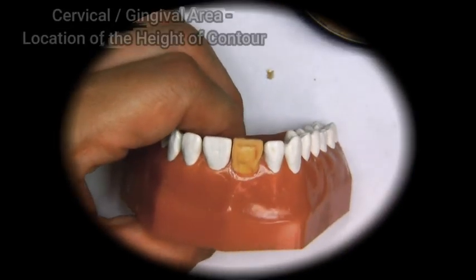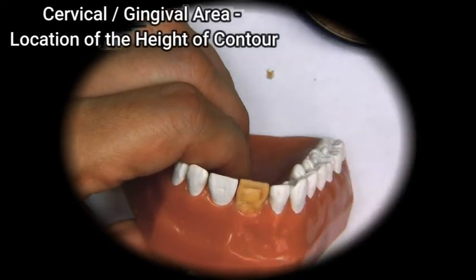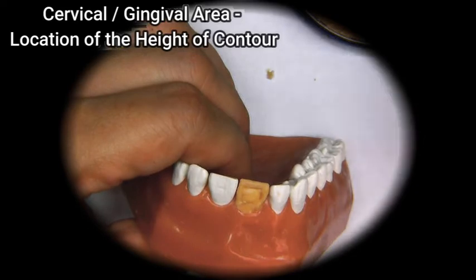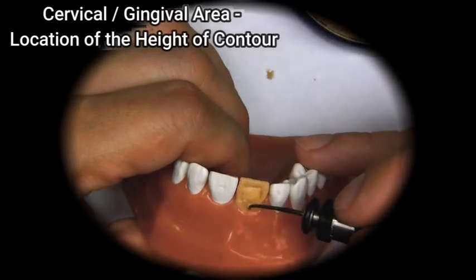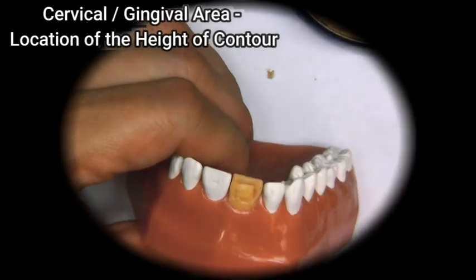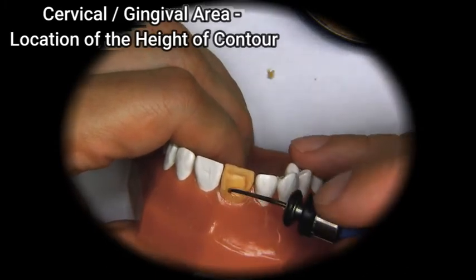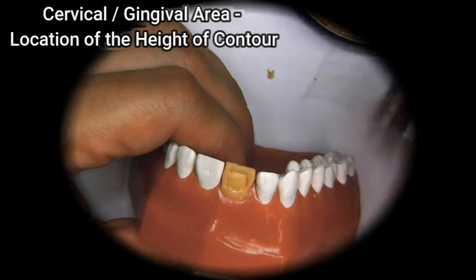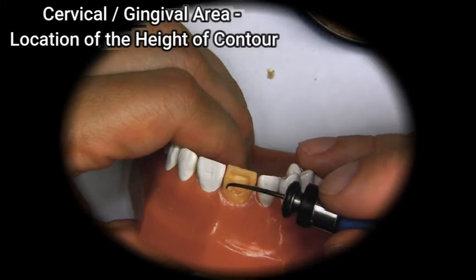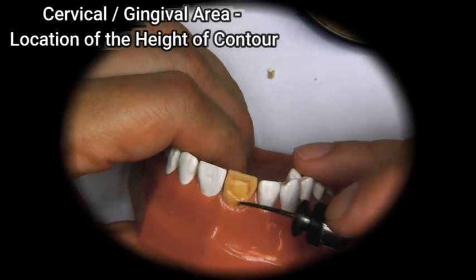The next portion is the gingival aspect, or the aspect closer to the gum. This is the area where the height of contour is. The contour is the shape of the tooth. Height of contour means it's the highest part of the tooth, or the highest part of the tooth shape. So we kind of build it out a little bit.